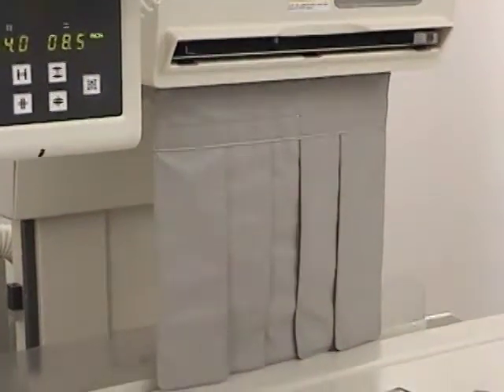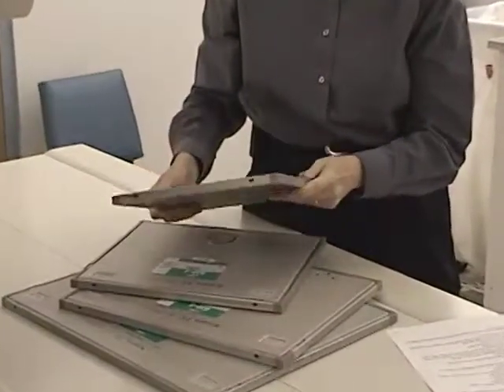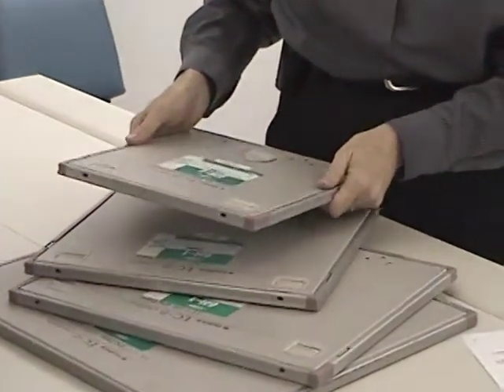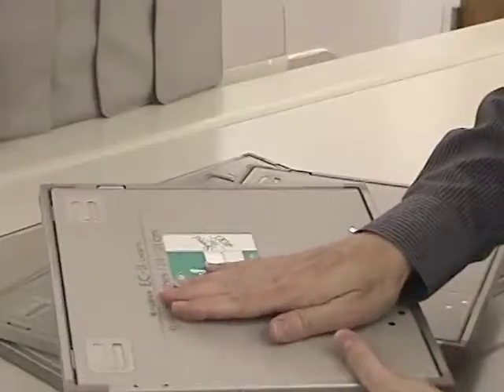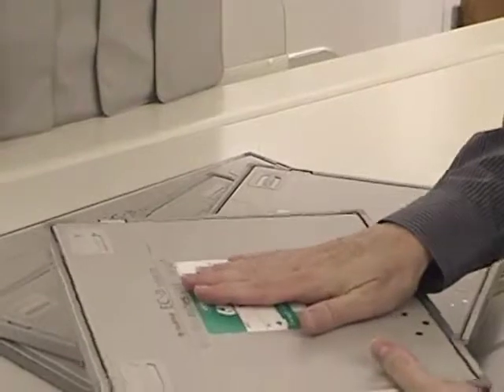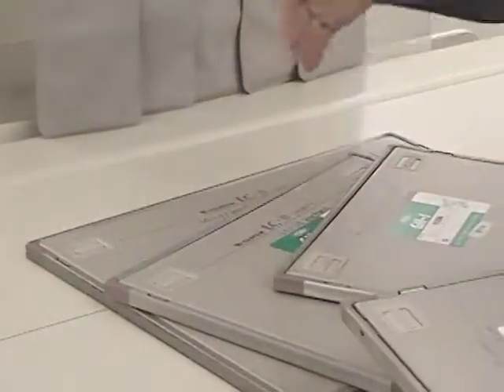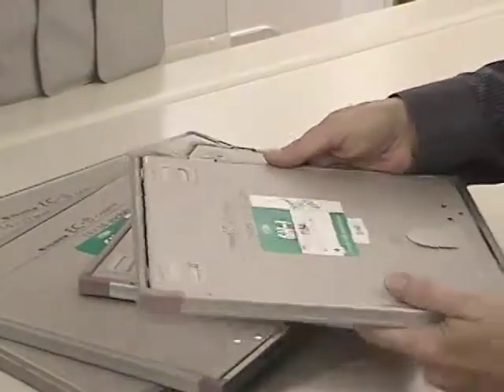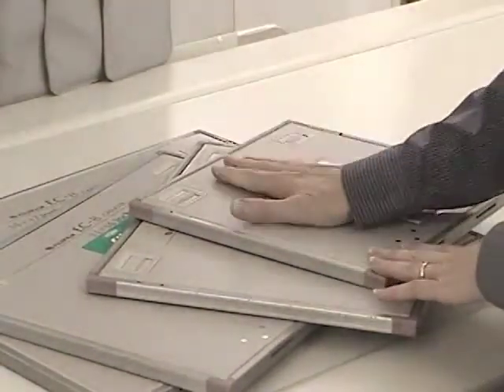Handle the cassettes in your facility. Find out what kinds of cassettes and what sizes you have. These are 400 speed, which is very typical these days of the kinds of cassette and screens that would be present in any facility. This is a 9.5 by 9.5, which is not common for most facilities. Common ones are 14 by 17, 11 by 14, 10 by 12, and then 8 by 10. But this facility uses their 9.5 by 9.5 for 2 different applications and have opted not to have 8 by 10s.